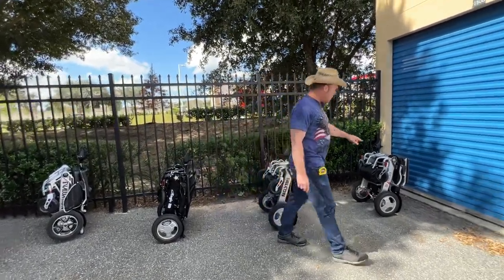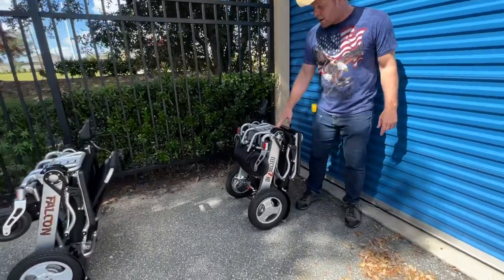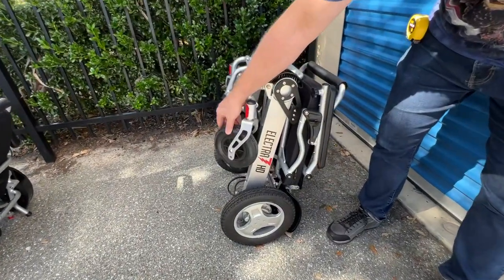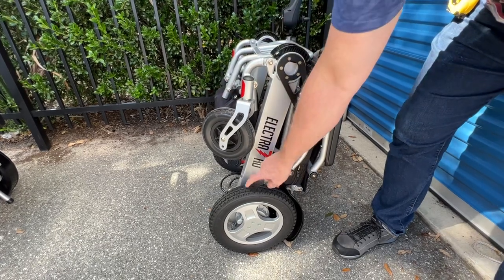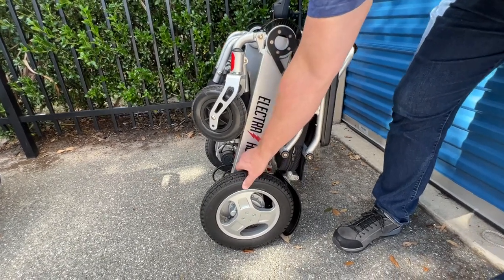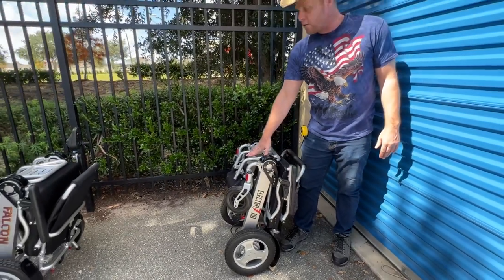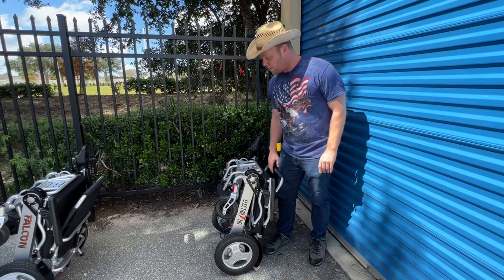We'll start with the Electra 7. This chair is an HD chair — it holds up to 400 pounds. You've got about seven and a half by one and three quarter inch wheels approximately in the front, solid polyurethane, and a little bit over 12 inches in the back, also solid polyurethane. No air in the tires. This chair, without the batteries, weighs right around 50 pounds, give or take a few ounces.